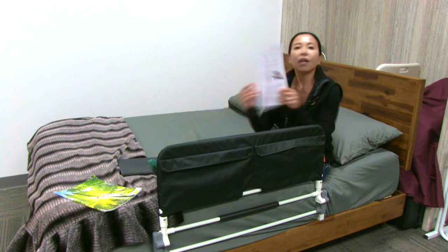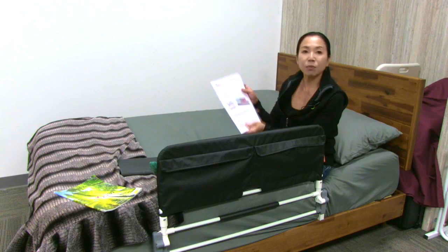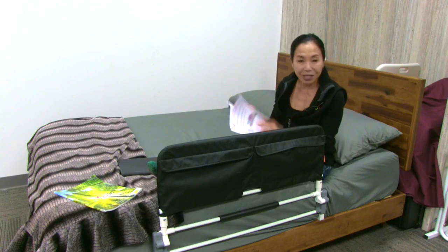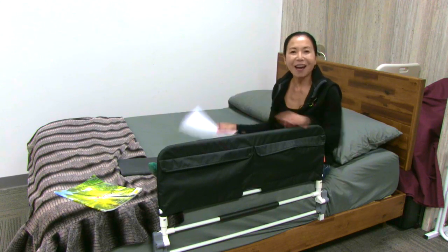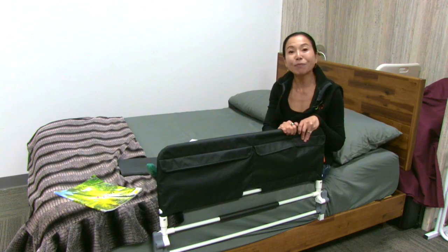Lastly, we include a very important guidebook. This guidebook reviews entrapment prevention guidelines, safety guidelines, and assembly. Be sure to review this very carefully. Let's embrace the folding bed rail and let's prevent falls.